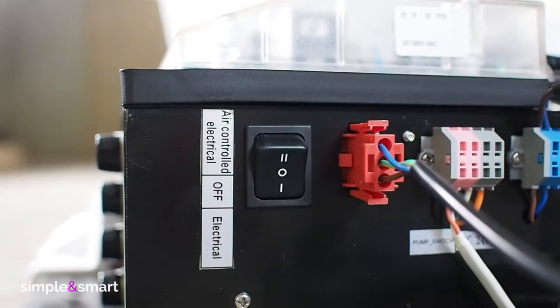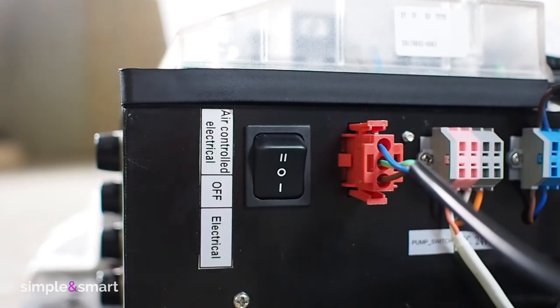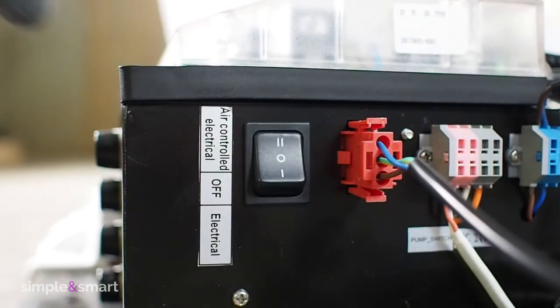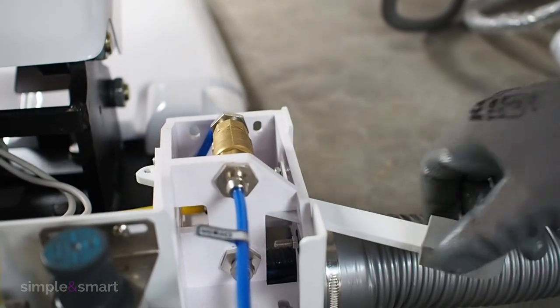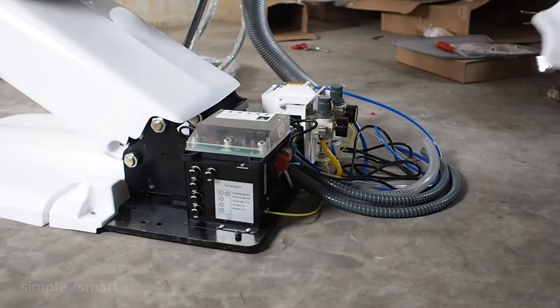Put the main on-off button in position 2. It will permit you to control the electricity of the chair just by opening and closing the side lever. Place the chair base front cover.